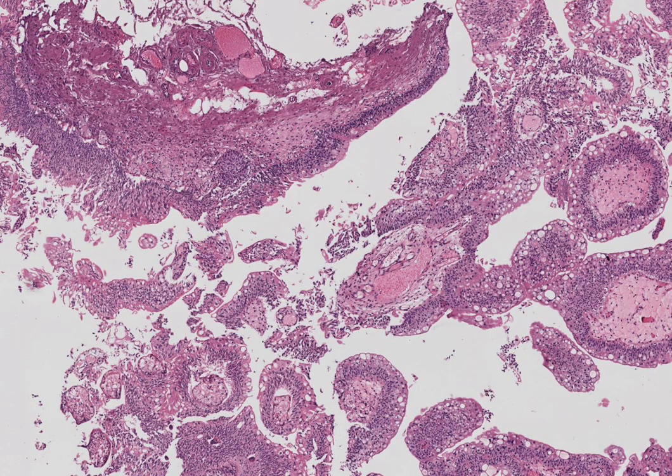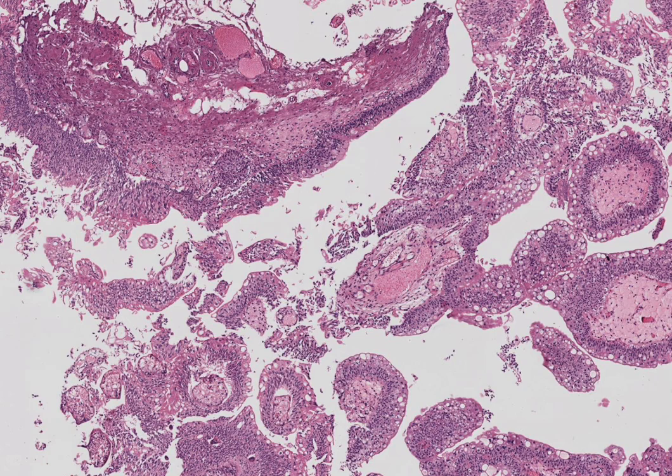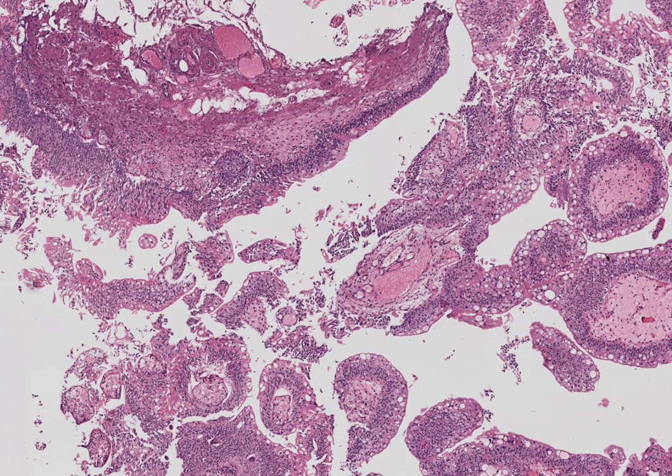Welcome to one more session of pathology by Ranjit Ayar. Today I'm taking up a unique topic which might have stumped most pathology graduates and sometimes consultants as well. This is a urothelial bladder lesion. I'm going to show you a series of lesions which are very close in differential diagnosis — handy for essay answers and diagnostic slide work. I'm going to compare three different lesions here.